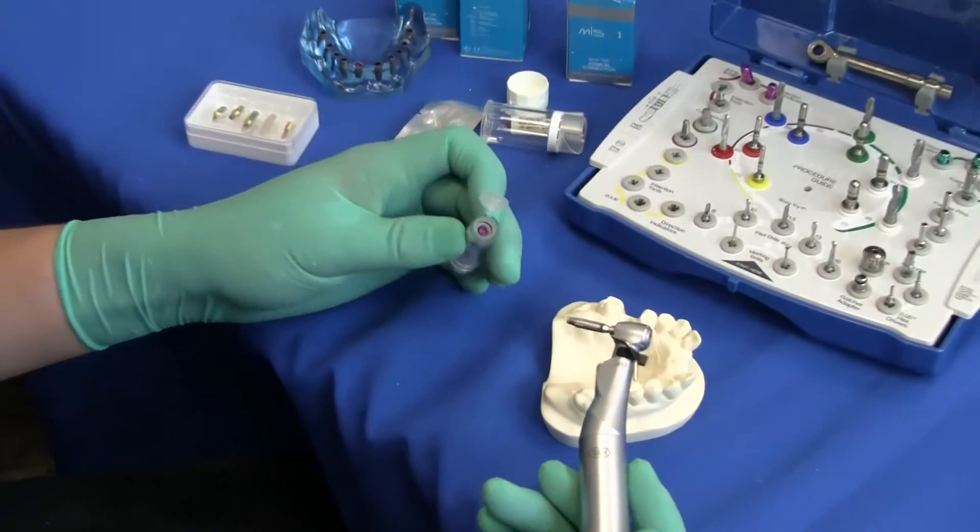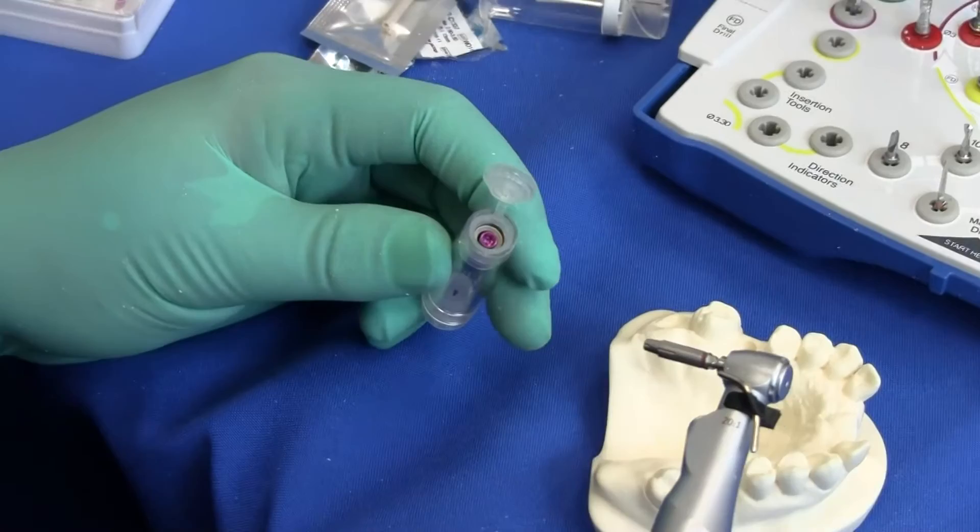Notice the top of the implant is coated purple, just like the delivery tool, ensuring you have the matching parts.